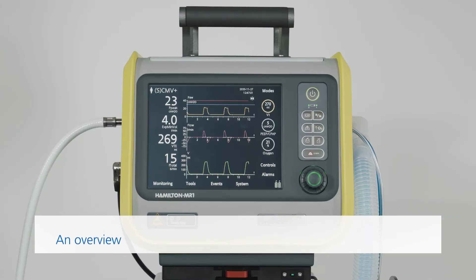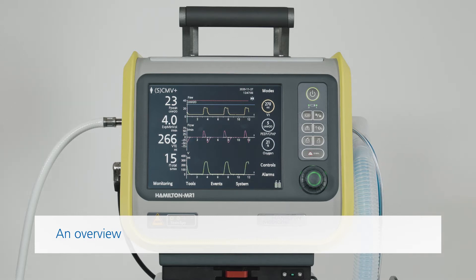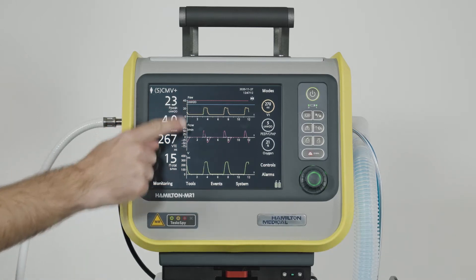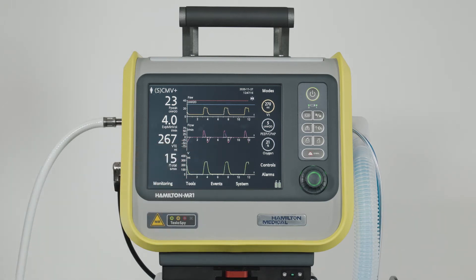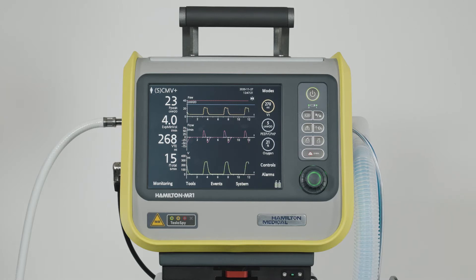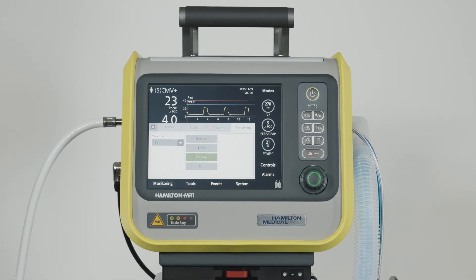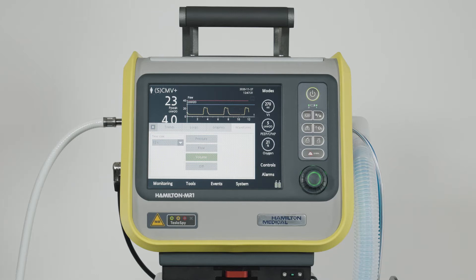During active ventilation, you can see all the available patient data. The biggest part of the display is dedicated to patient monitoring. In the center, you can see two primary graphic areas. One is reserved for the pressure-time waveform and is always displayed. Right underneath that, there's another part that you can customize to suit yourself — you can select what you would like to be displayed, whether it's other waveforms, loops, trends, or even intelligent graphic panels.